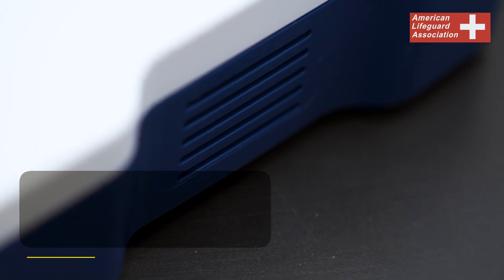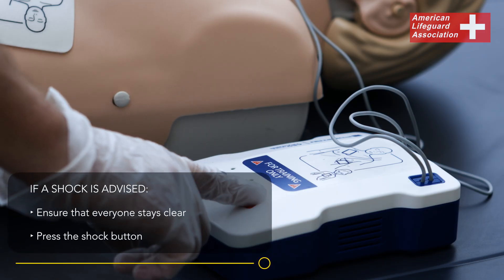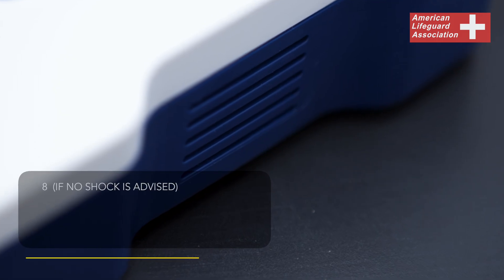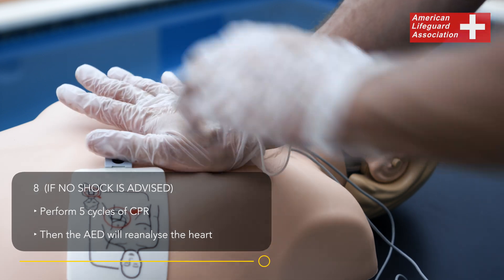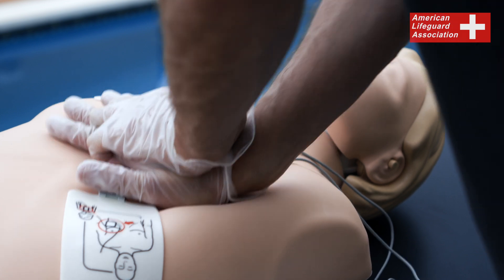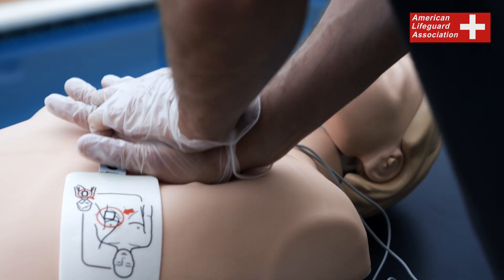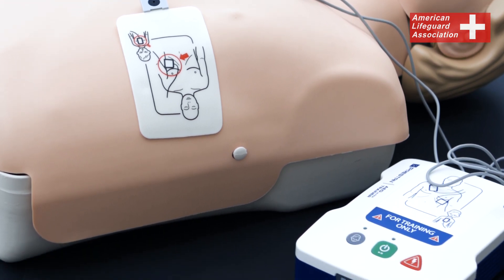If a shock is advised, ensure everyone is clear and press the shock button. If no shock is advised, perform 5 cycles of CPR before reanalyzing the heart. Remember, prompt use of AED, along with CPR, can significantly improve the chances of survival during a cardiac emergency.